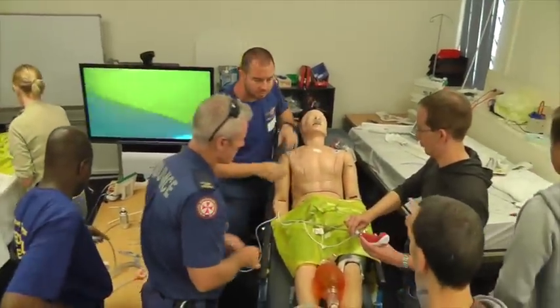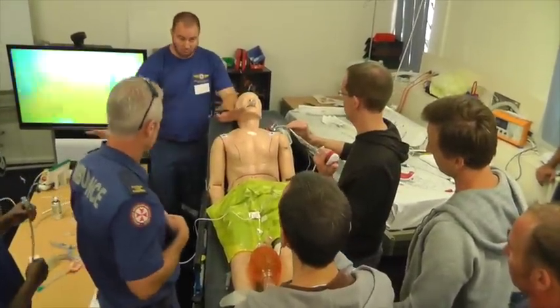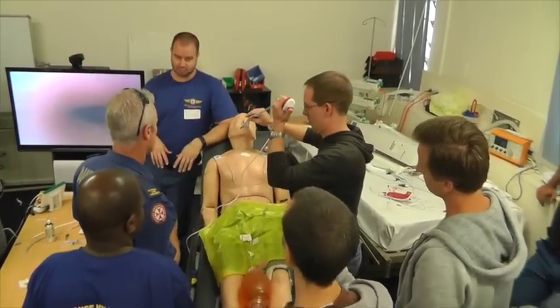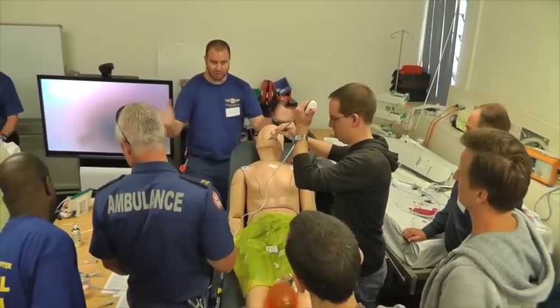Geoff, quick question. With nasal intubation, what size tube? Size 6. It's in the kit. That's all we provide you with. Use the kit as it comes. The reinforced one? Size 6 reinforced every single time. The kits are designed to be purpose-built so that it works.